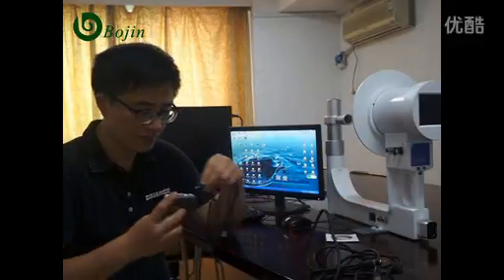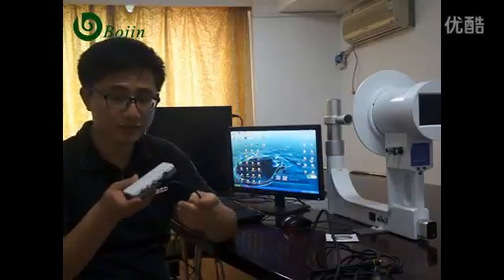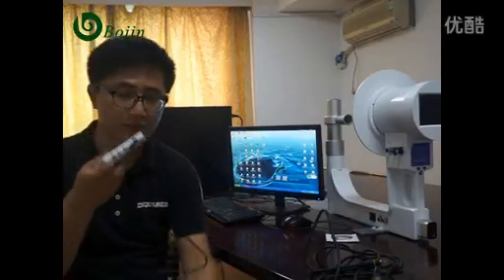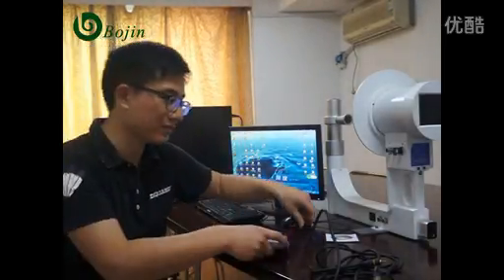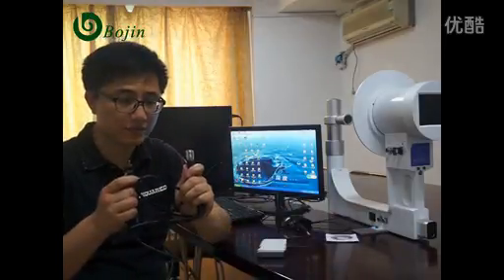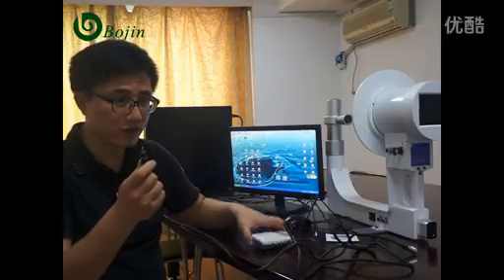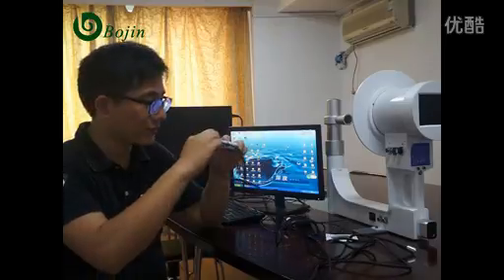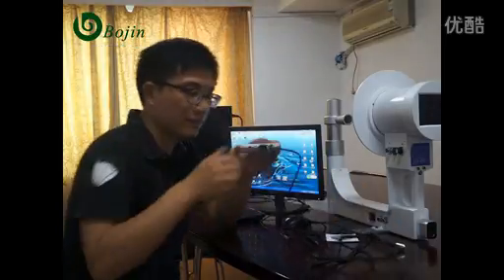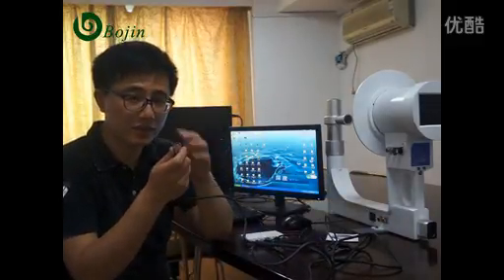Connecting USB. Connecting to the computer. Audio line — connecting to the audio. The yellow — connecting to the video-out station.